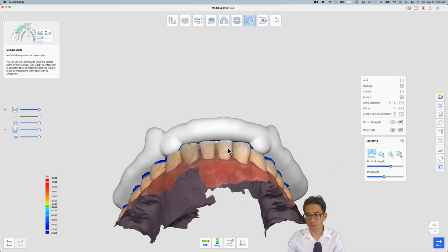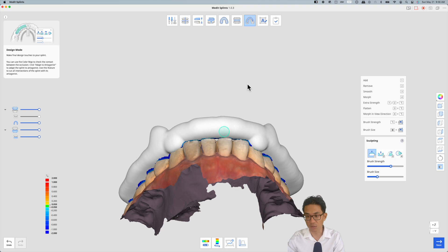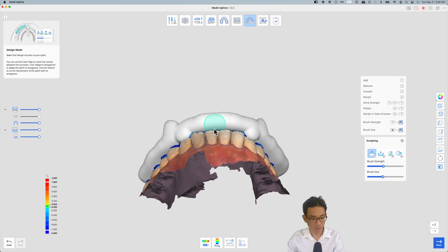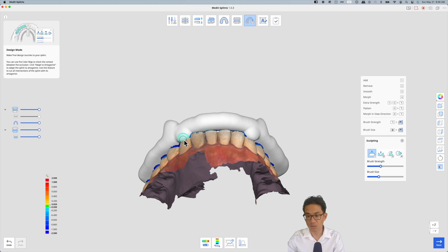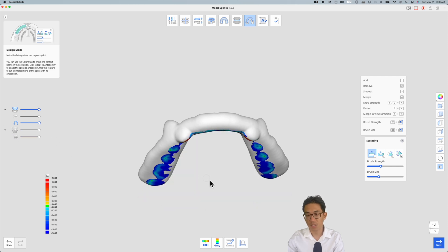Hitting Command or Control in Windows and mouse wheel, you can change the brush size, whereas hitting Option and the mouse wheel or Alt in Windows changes the brush strength. So I wanted to change the brush size a little smaller so then I get more of a point here.